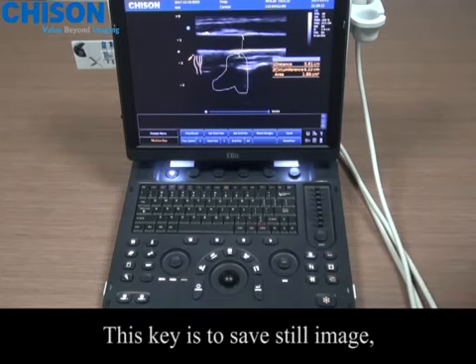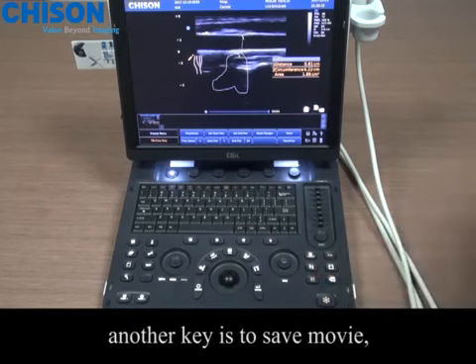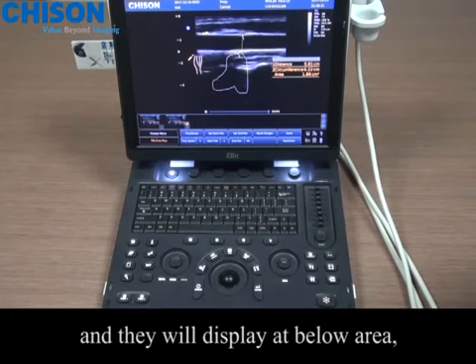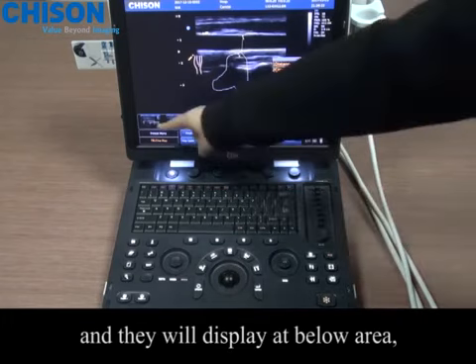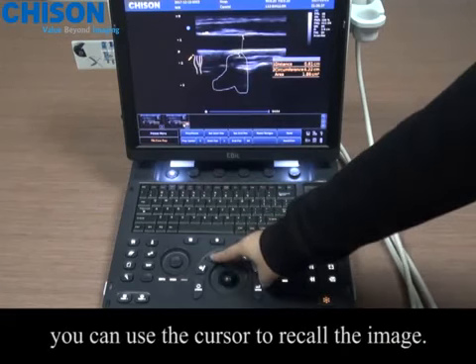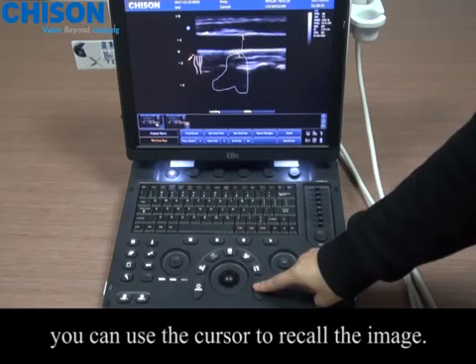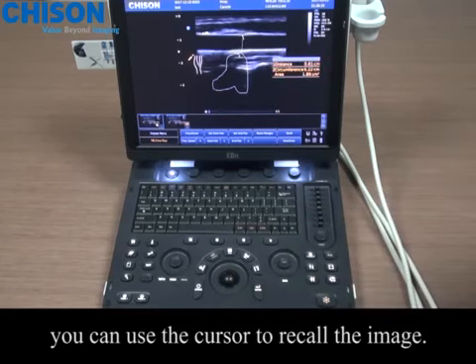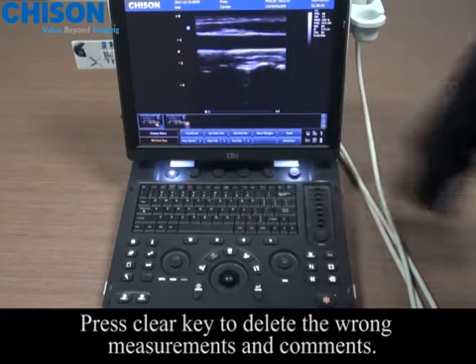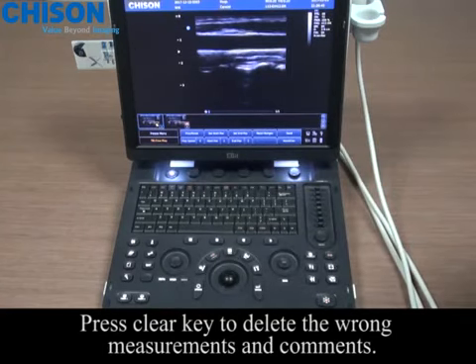This key is to save still image. Another key is to save movie. They will display in the below area. You can use the cursor to review the image. Press the clear key to delete wrong measurements and comments.